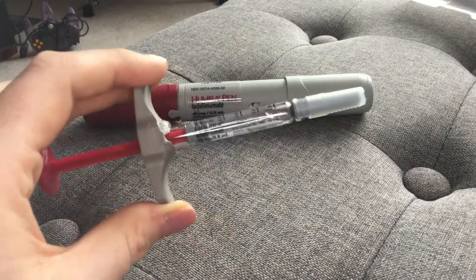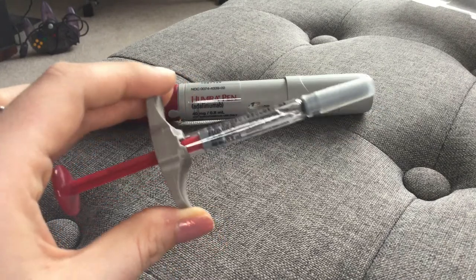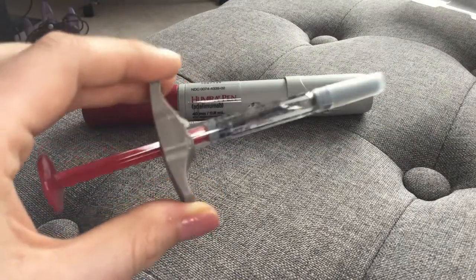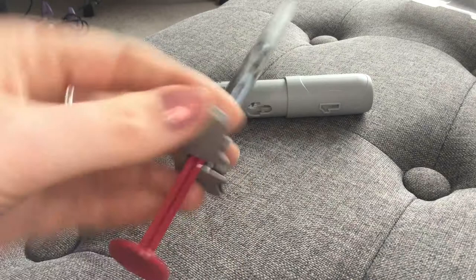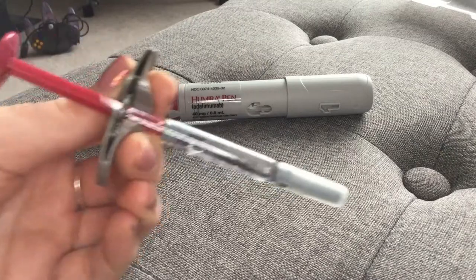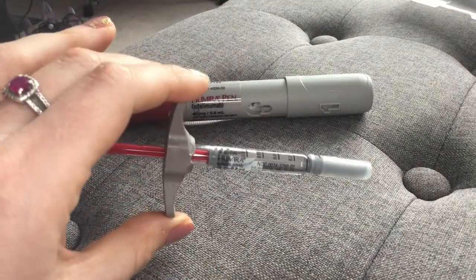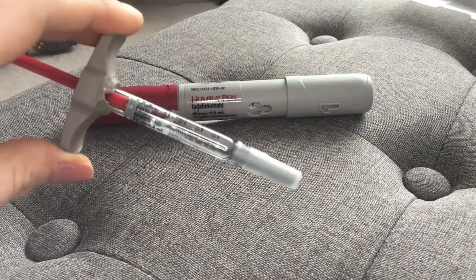There are also no springs and no crazy noises. It's not like a gun where I have to push a button and mentally psych myself up. The only thing I had to teach myself is how to hold it, and it's actually very comfortable because it has nice little finger holders. It's kind of like holding a pen. The only technique I had to learn is how to get it into my skin at the right angle — you just practice a 45-degree angle.